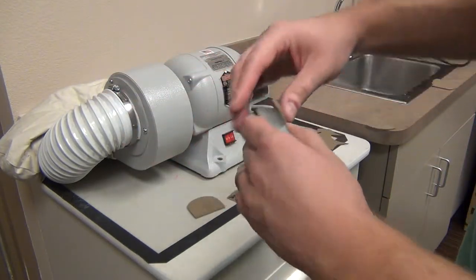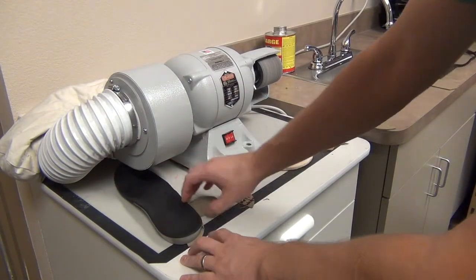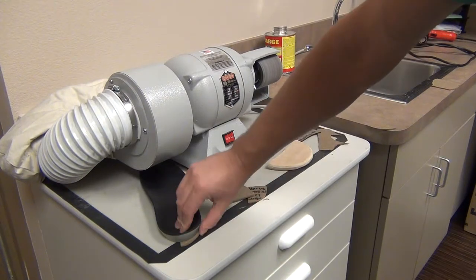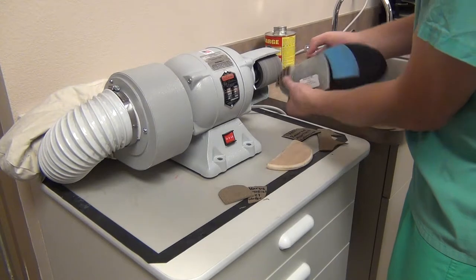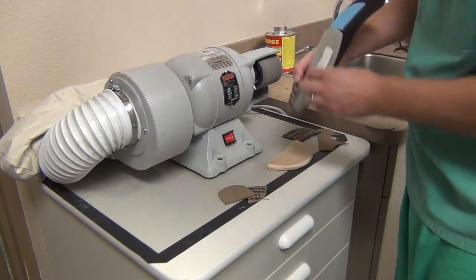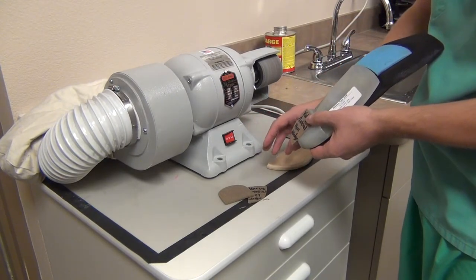That's what you're going to want to do so that when the patient walks, and you put it on the table, you don't see that rocking that we don't want to occur. So literally, once you've glued it on there, you grind off the excess on the outside, and then while holding the device, slowly grind off a smooth taper on the side. And that's how we do modifications of orthotics here at FAN.